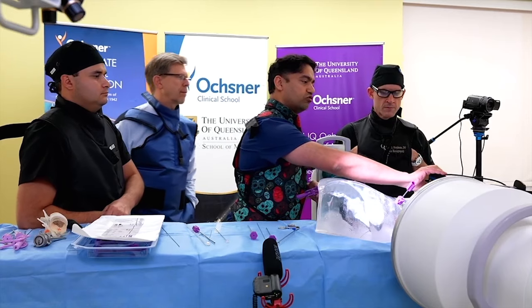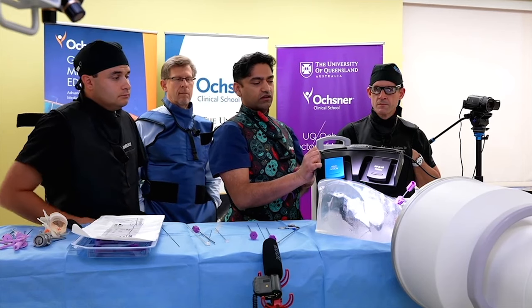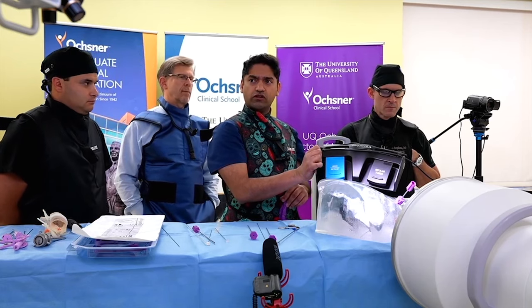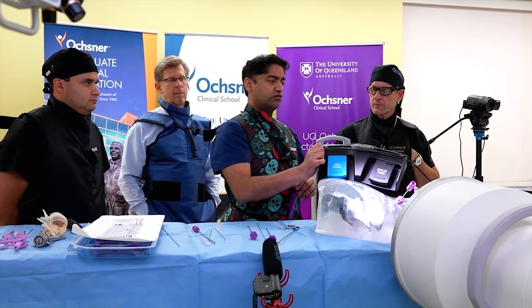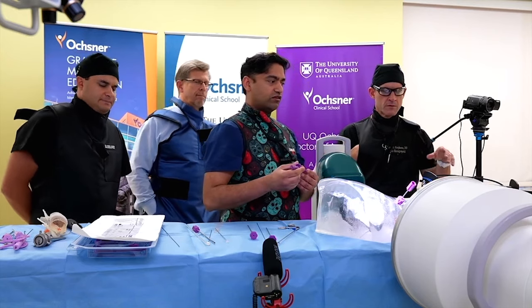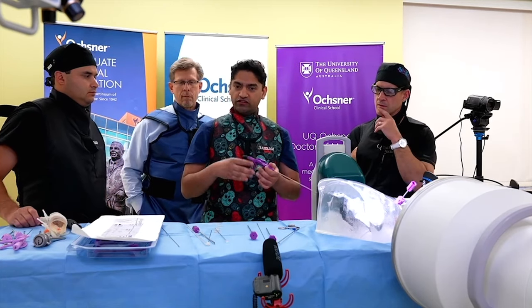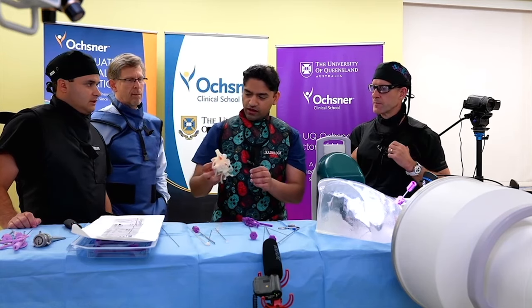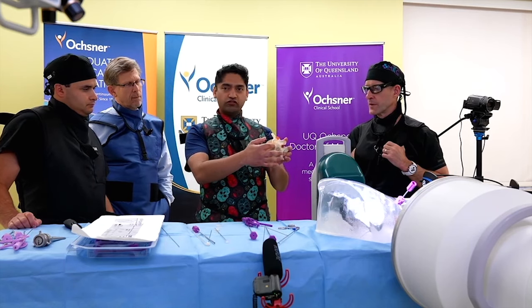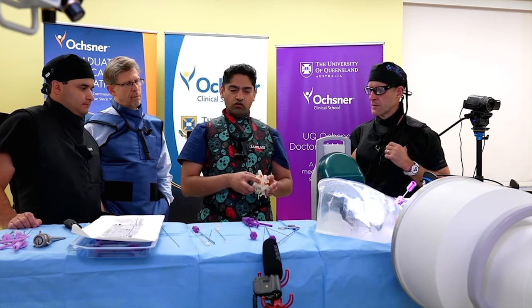This device has two pads. The black pad is when you want to ablate nucleus — that's bipolar turbo. Bipolar hemo is lower temperature, lower energy; you don't want to ablate annular material, you want to seal it together, so that's used when closing the hole punched through the annulus and when you want to seal micro tears — for example, if you have high-intensity zones on MRI. Every disc herniation has micro tears along the posterior aspect, and you go in with this and seal those tears all the way through.